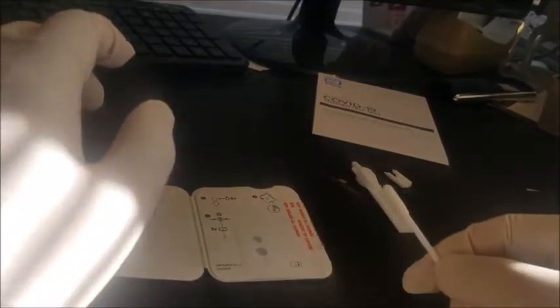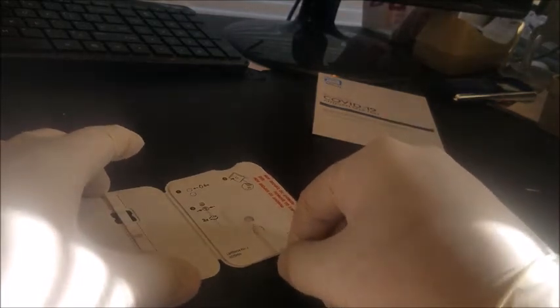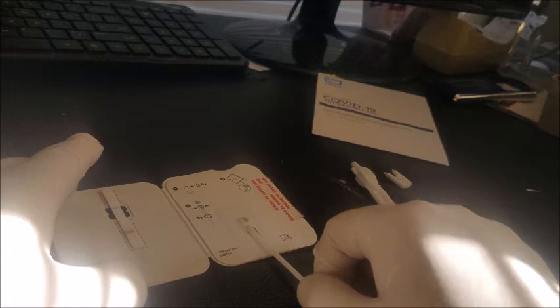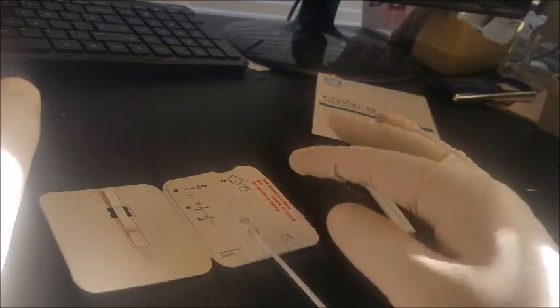You're going to take your swab and, with your test card, firmly put it in the bottom hole so that it's visible to the middle hole — you can see both. It's going to reside there. From there, you're going to circle your swab clockwise three times to the right: one, two, three. This swab is going to remain in this card for the remainder of the test.